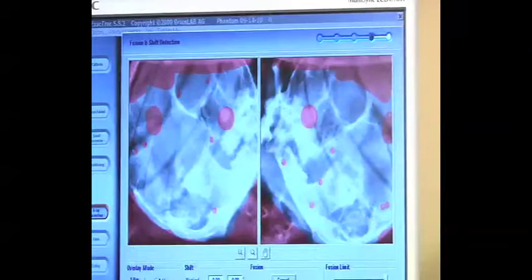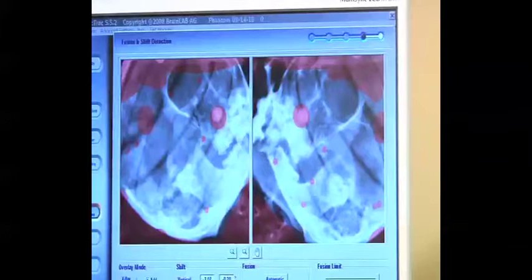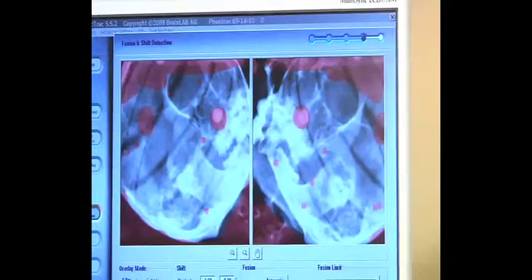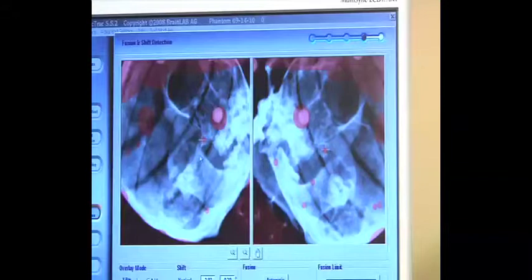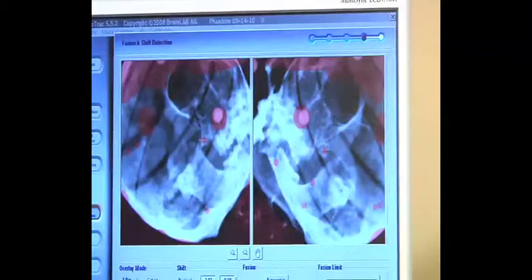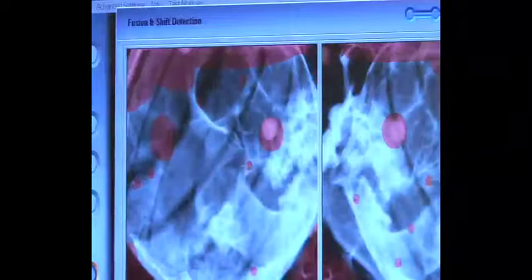One more visual inspection — looks good, so I'll approve the fusion. I'm going to toggle between the x-ray and the DRR, just to make sure I'm looking at the eye sockets here, also looking at the teeth — which on a patient you should not look at — looking at the jaw bones here. And when I toggle between the x-ray and the DRR, the eye socket and these jaw bones are all aligned, they're well aligned, so this is a good fusion.